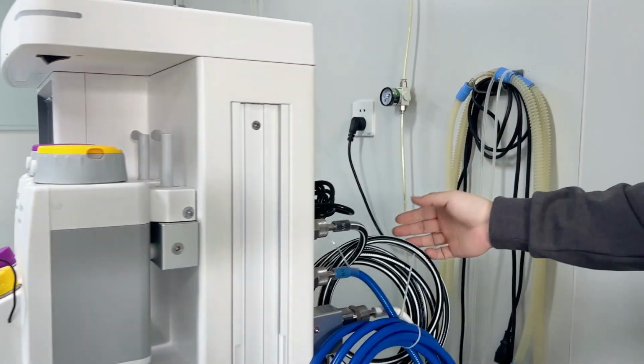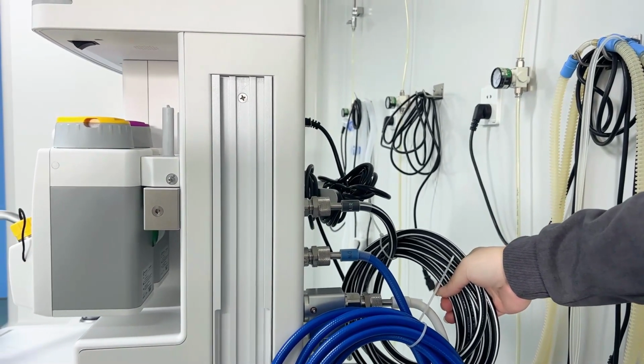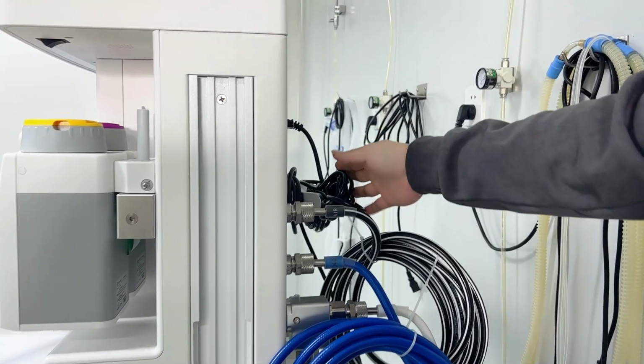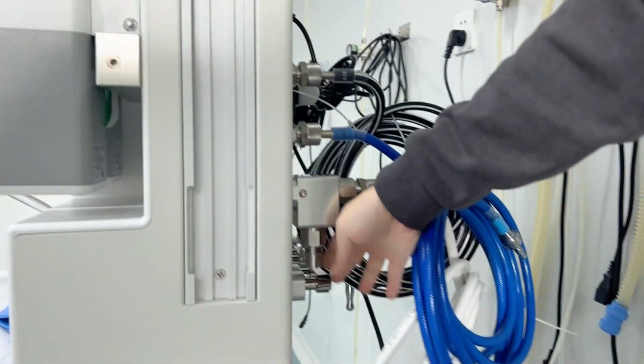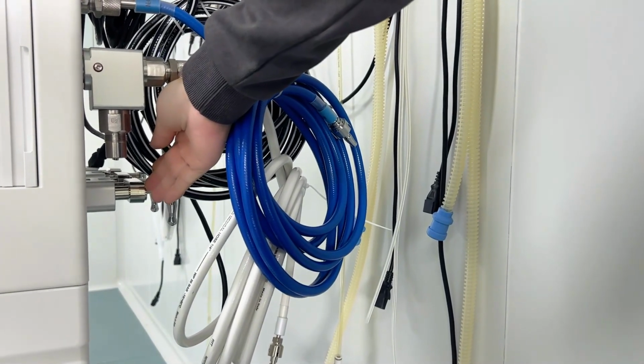By the back side here, we will give the high pressure breathing pipe, the gas high pressure pipe, the power line, and if you have the requirement, we will also give the yoke. And we can give 1 gas with each yoke.